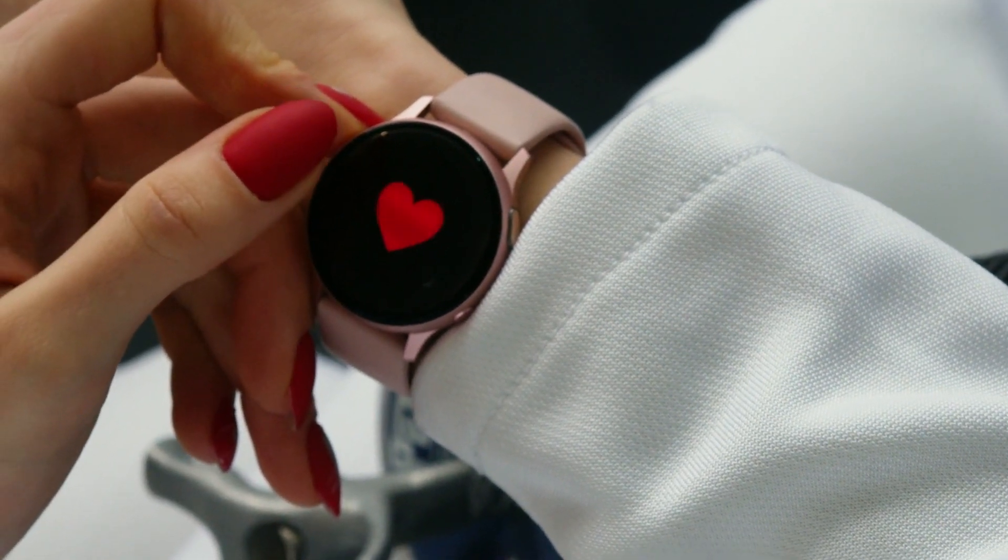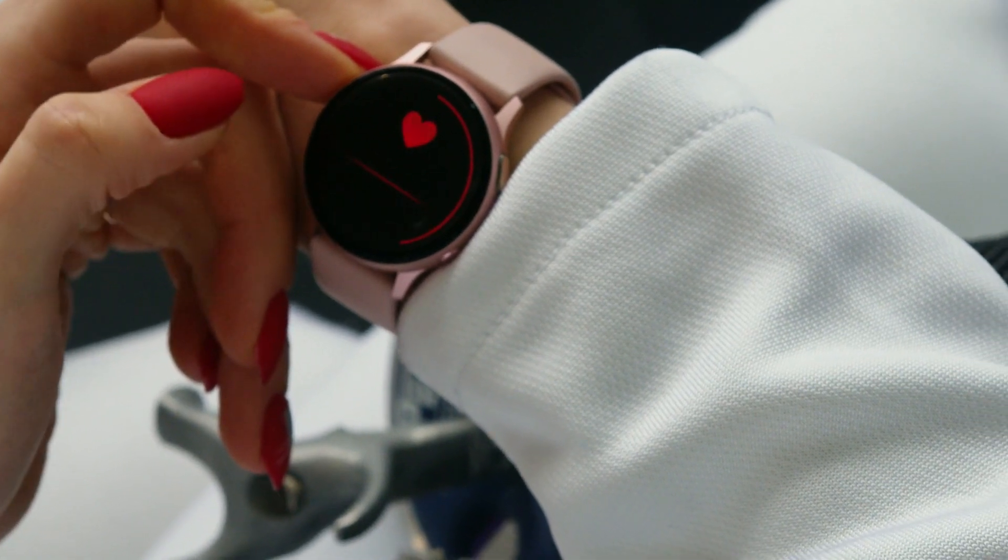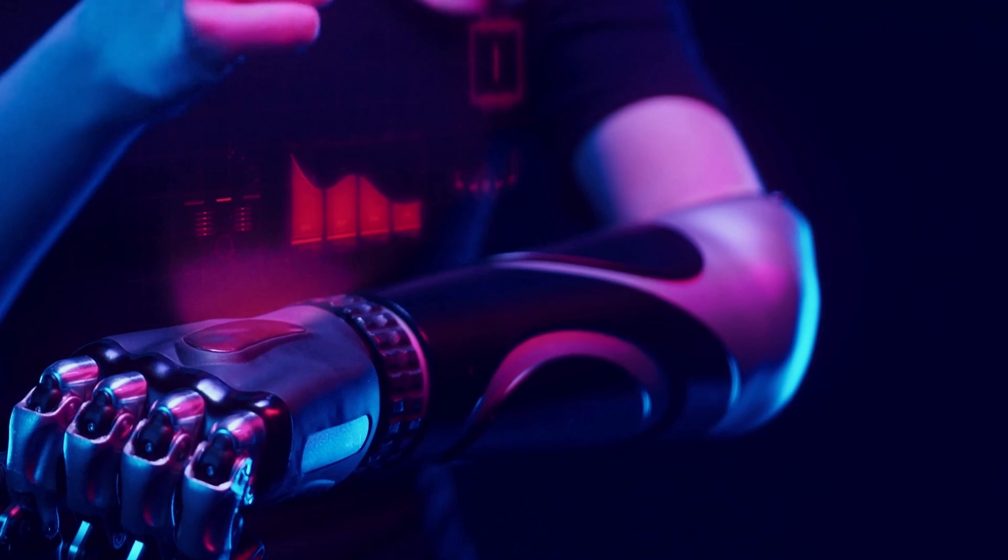Wearable bioelectronics is important for continuously screening bioactivities due to their unique capability to mate with your skin. So, how to keep a steady drumbeat of advanced innovation across the area of wearable biosensors?